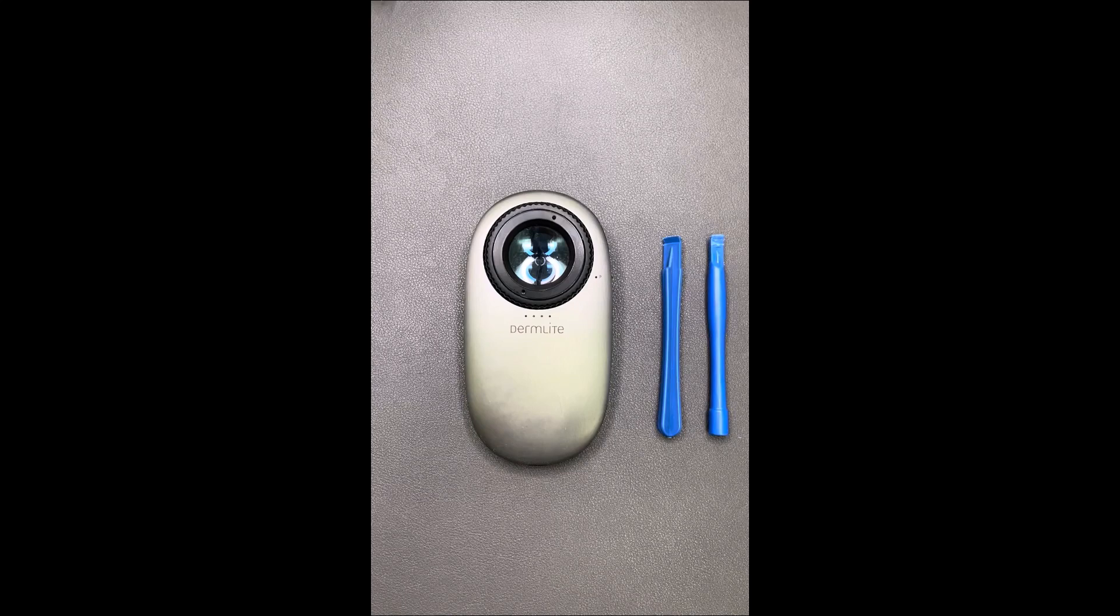In this video, we're going to show you how to remove and replace the battery in your DermLite DL200.